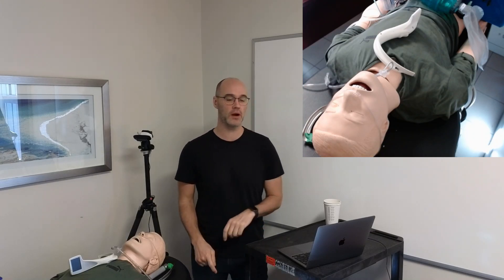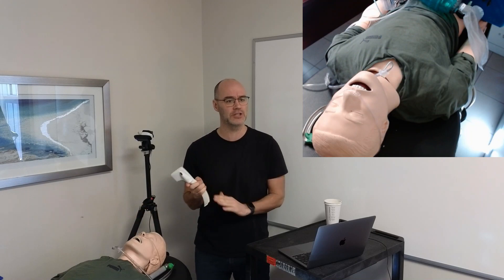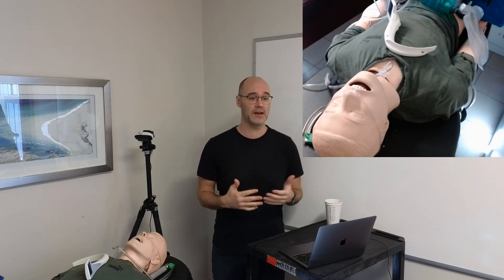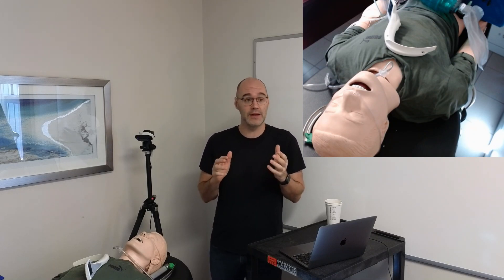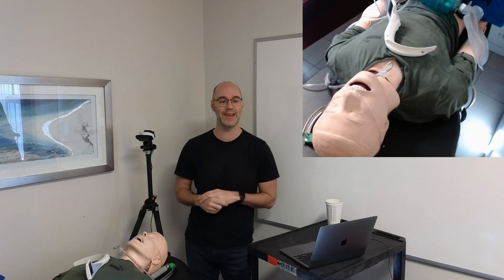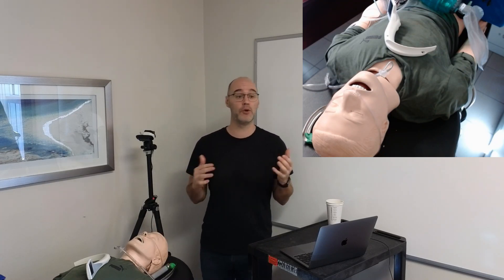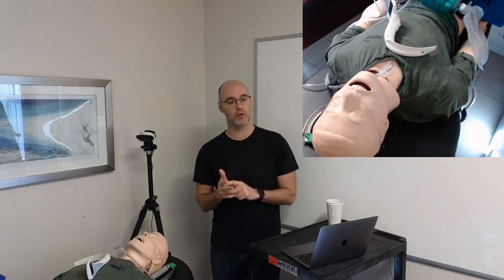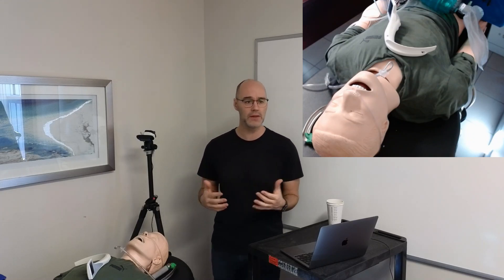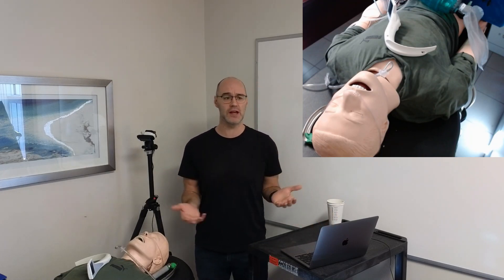Welcome back to another video. In this video, we are going to review an introduction to direct laryngoscopy and into video laryngoscopy, specifically a Macintosh-styled video laryngoscopy. I'm a paramedic and I've intubated lots of patients over my 20 years of career, but the people with the largest voice in intubation would be anesthesiologists who intubate hundreds of patients every year. I'm going to introduce you to some of the basics and some of the common mistakes, but there is a diverse amount of perspectives.